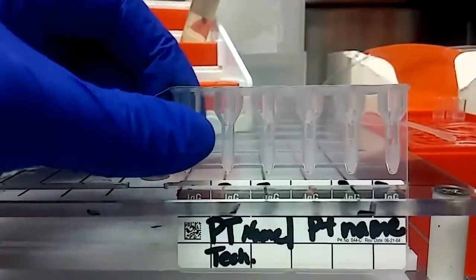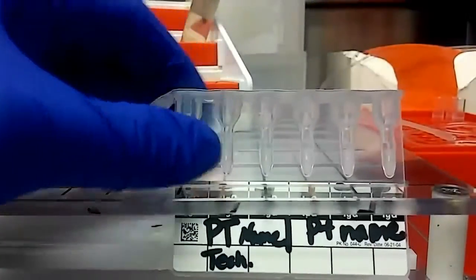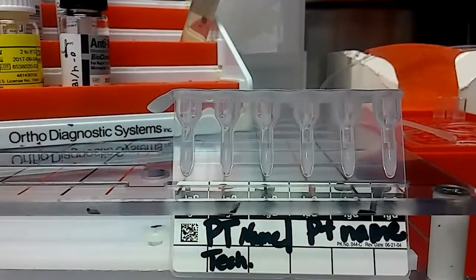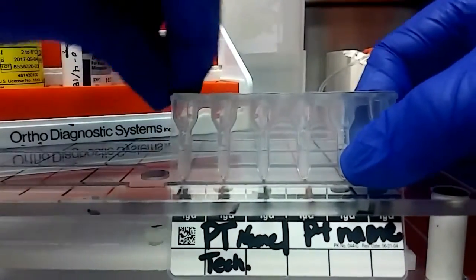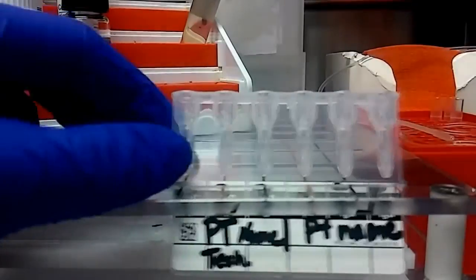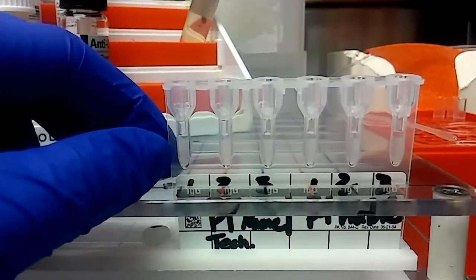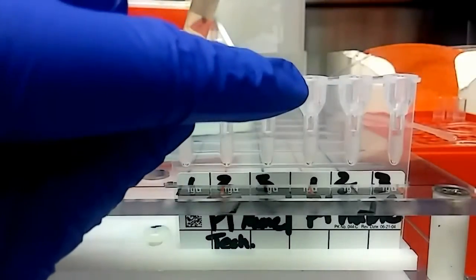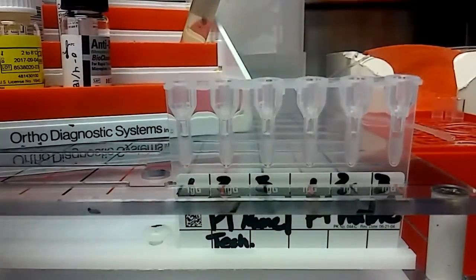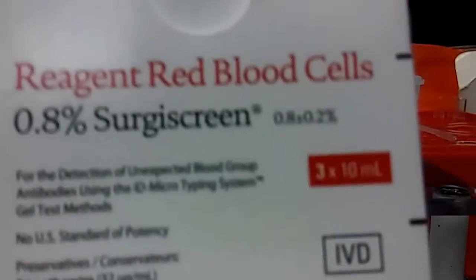There is a metal top that keeps things from evaporating when it's not being used — keeps the fluid in there. First of all, I'm going to take off the top. If you were just performing on one patient or one QC, then you can just remove the foil to the halfway mark of just three.